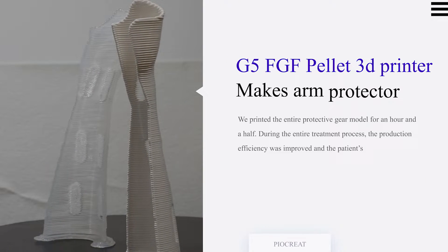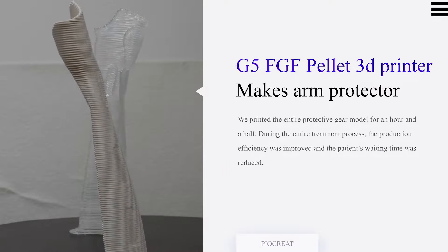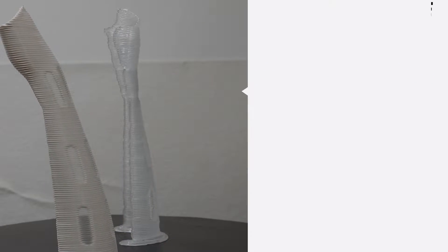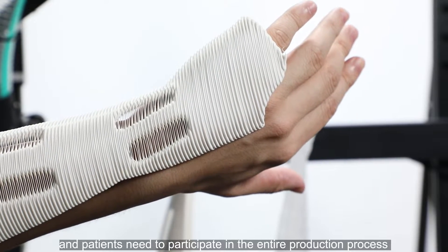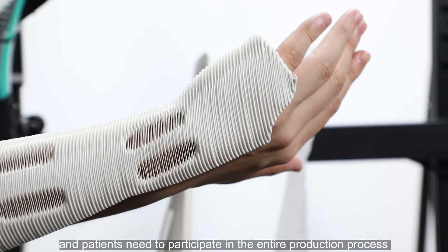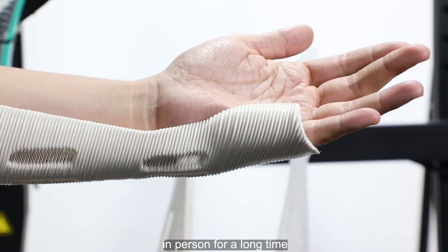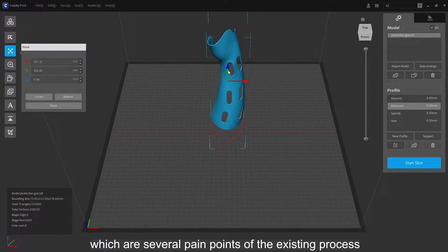The entire production process of traditional medical braces and orthoses is relatively complex. Patients need to wait for a long time and must participate in the entire production process in person, which are several pain points of the existing process.